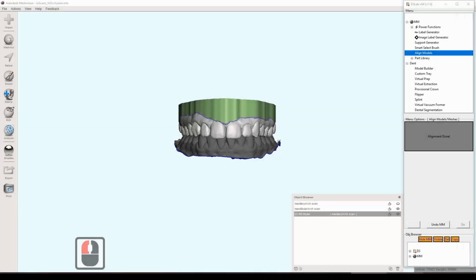Hello and welcome back. In this video I'll show you how we can take our based and realigned model and run through the segmentation tool.